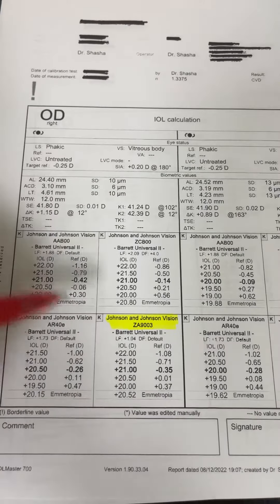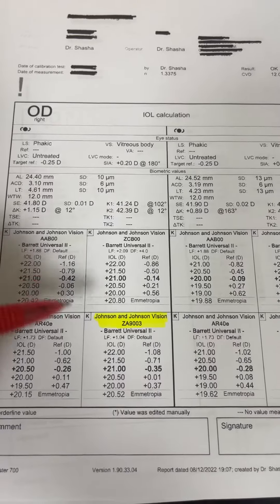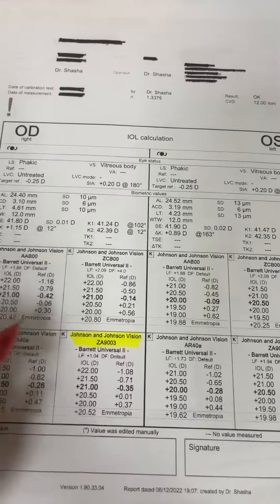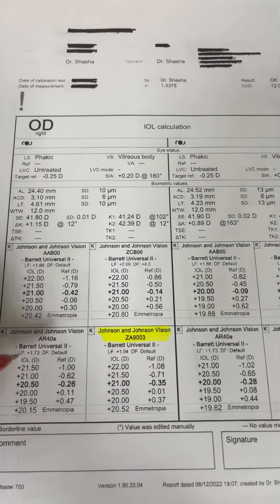So just to summarize, if you're seeing a patient with a dislocated IOL, it's important that your printout already has these lenses available. That way, you don't have to go back and forth with your technician to add or subtract lenses.